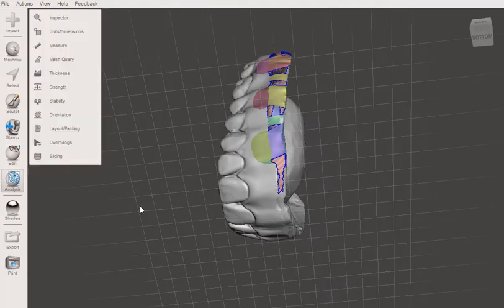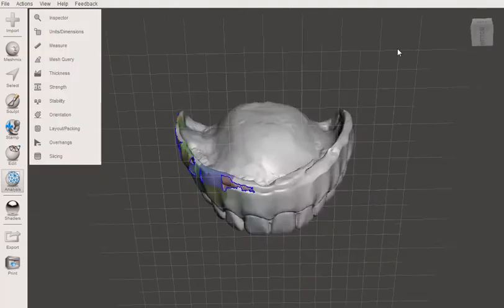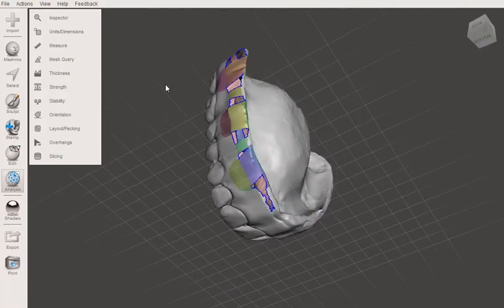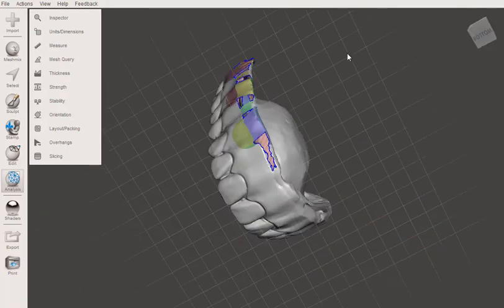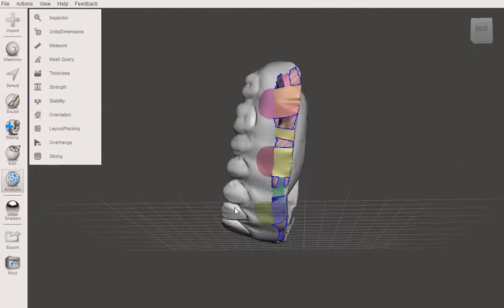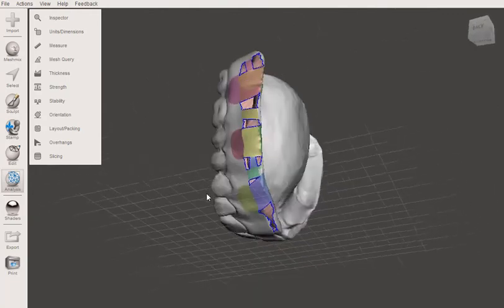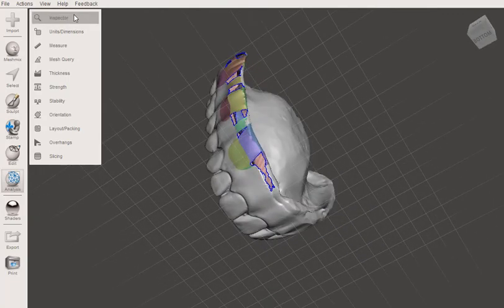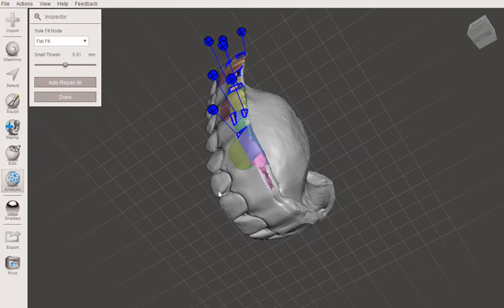Okay. So eventually I want to fill all these in, right? And I'll just go to the inspector for that. But you just don't want any huge gaping holes. You want to close these enough to where I just let the inspector take care of the rest. Let's give that a try.